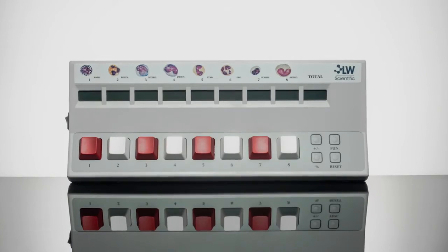This, the digital differential counter from LW Scientific, has been reimagined and reconceived for quick and accurate displays of blood cell counts and correlating percentages.